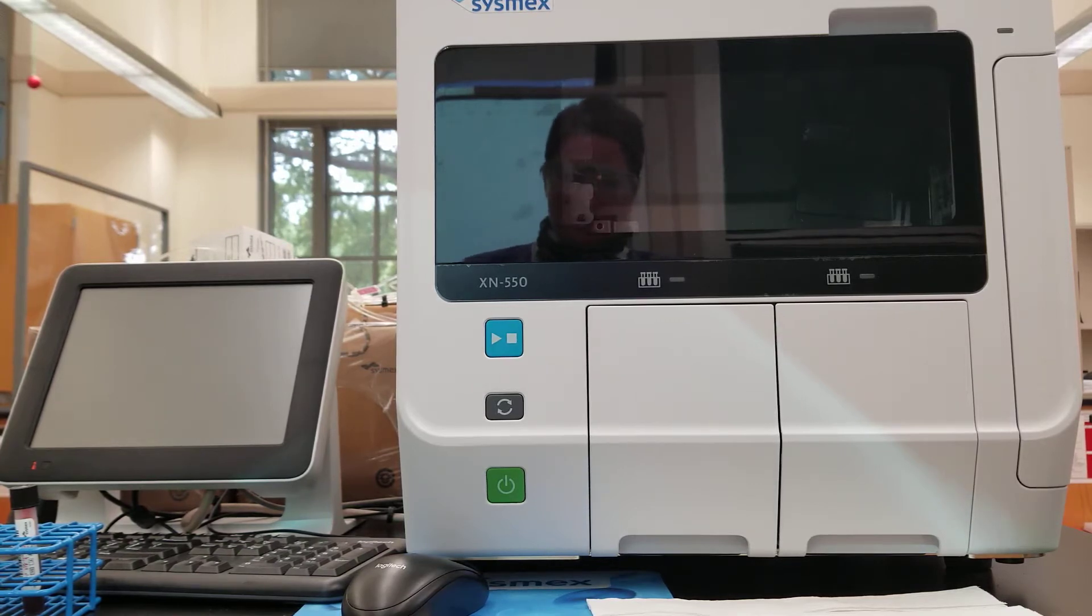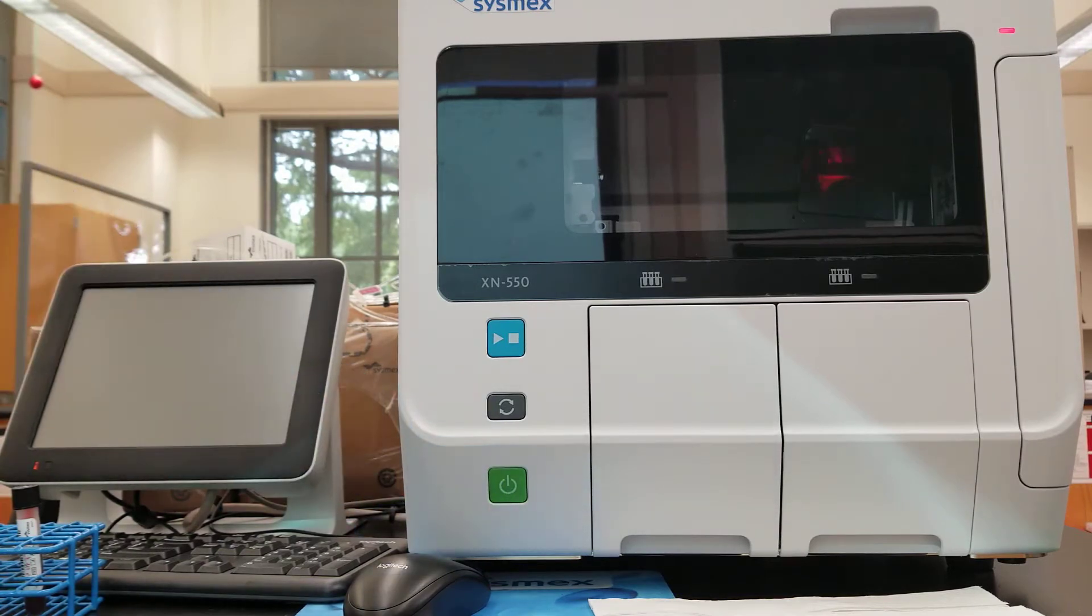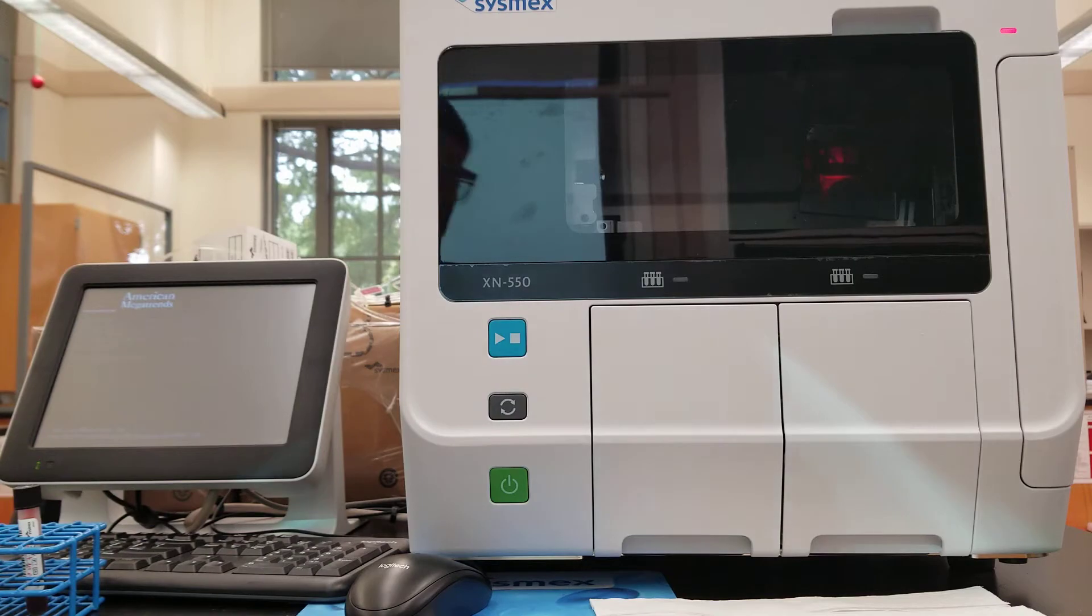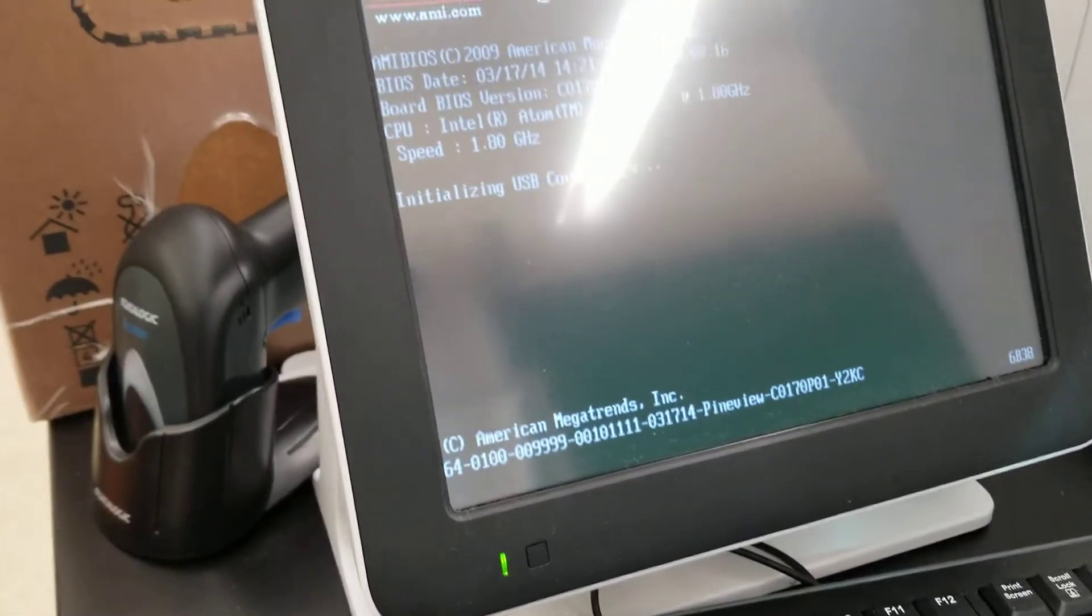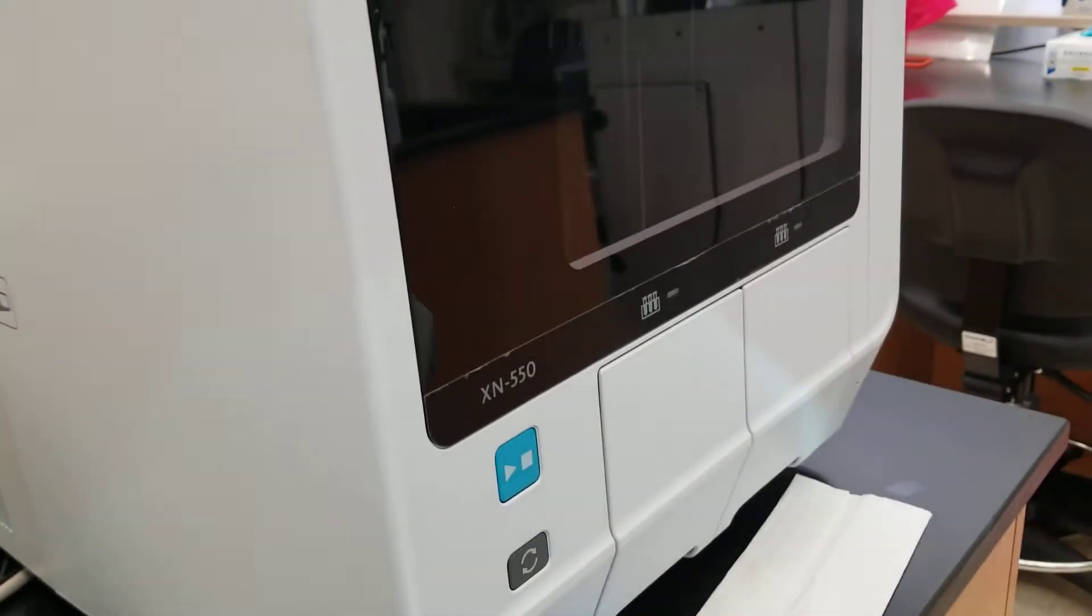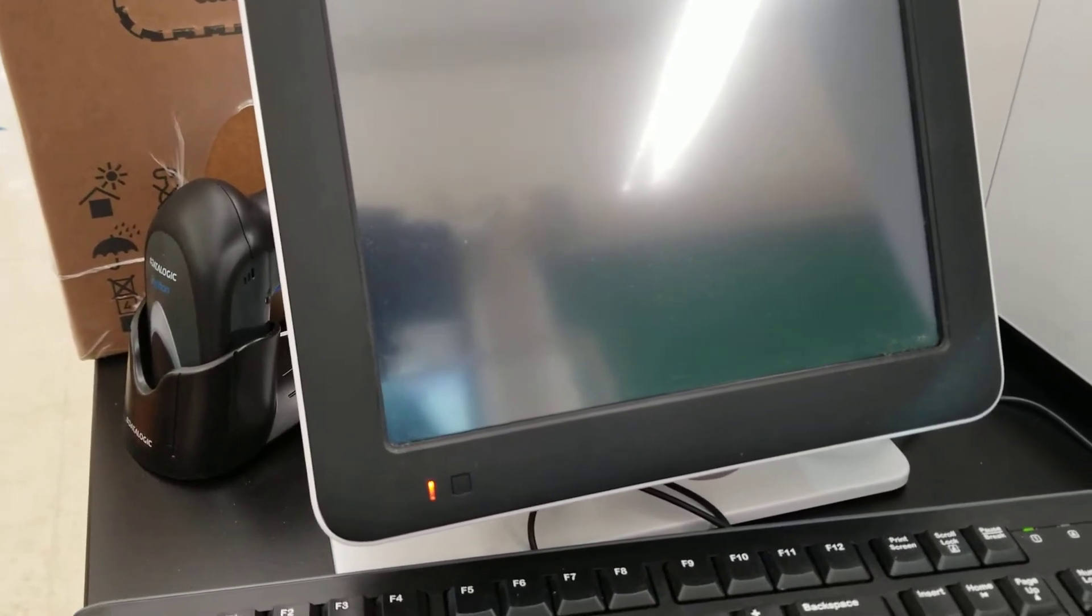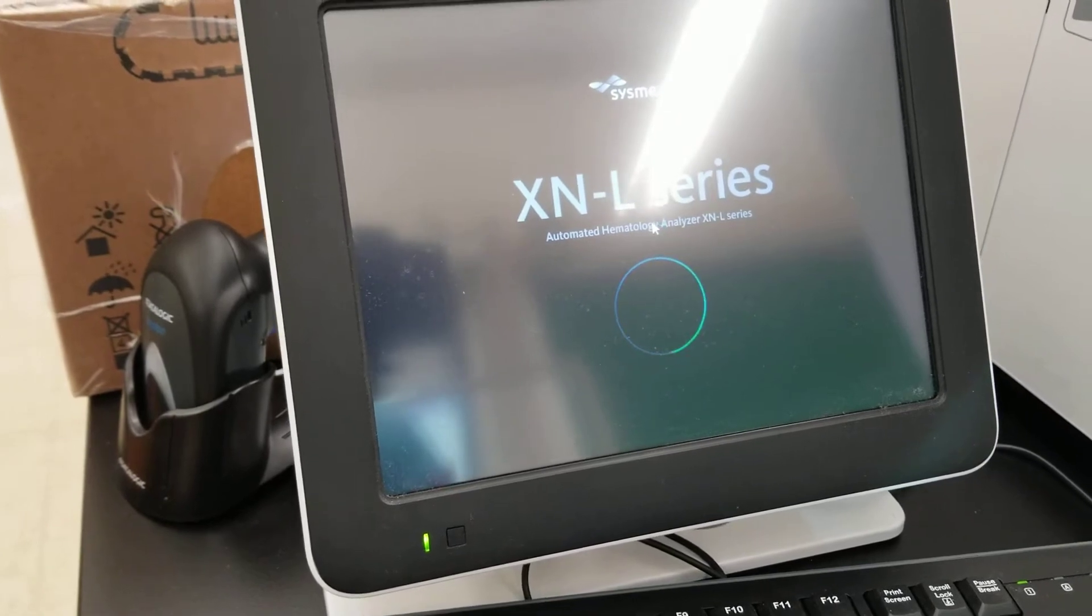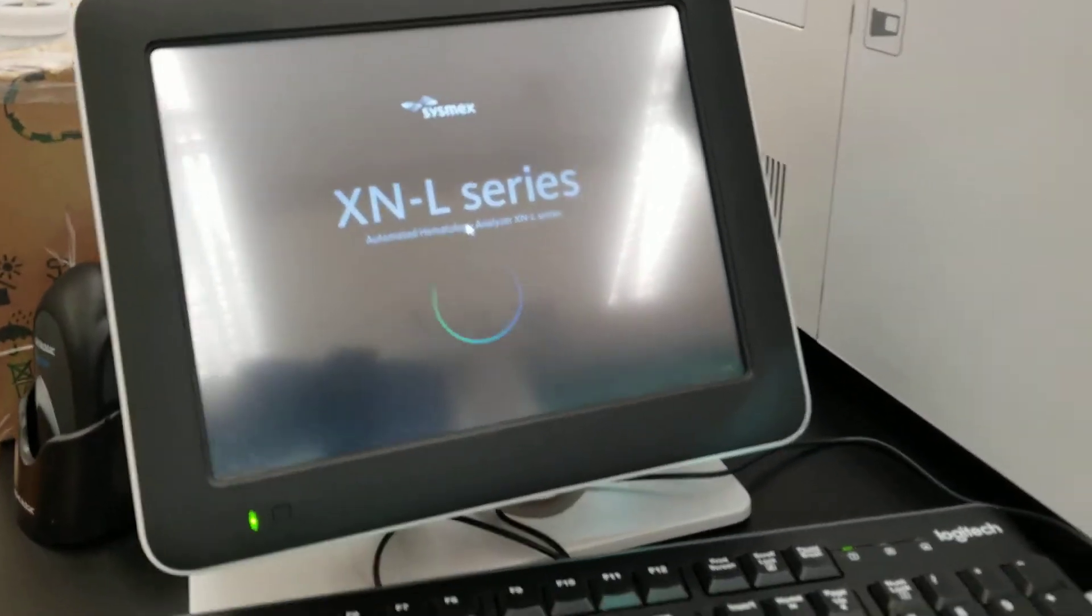What we're going to do first is turn it on. It is on in the back. You press the green button here and that should get things started. You see that the touch screen lights up. The barcode reader also lit up when it's first turned on. You don't really see much on the analyzer when this happens. The little lights are going to flash a little bit and you're going to see the touch screen start doing some action here.